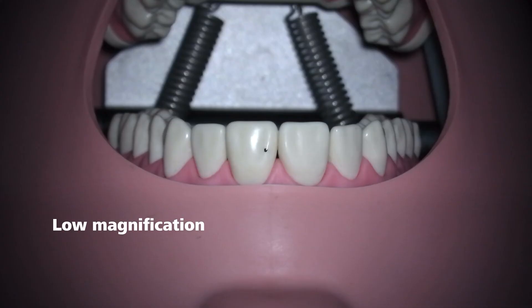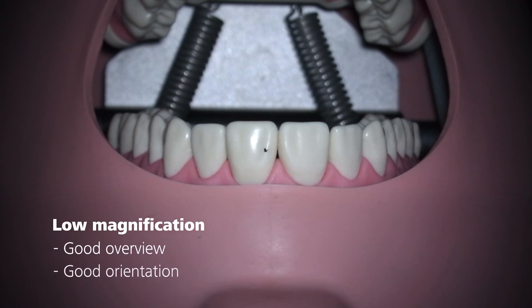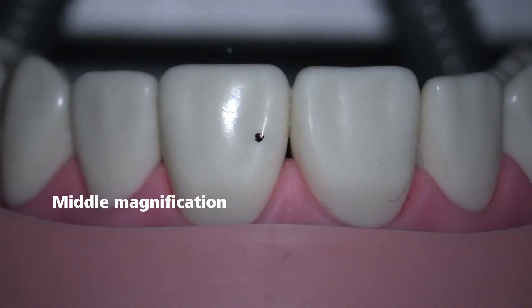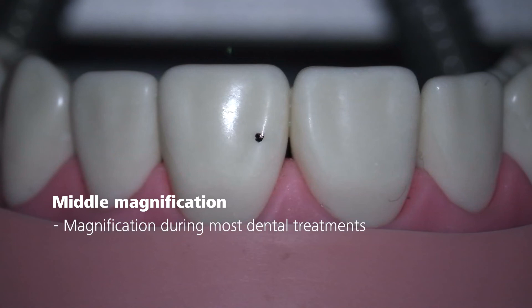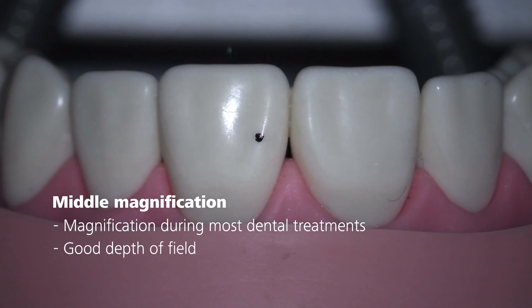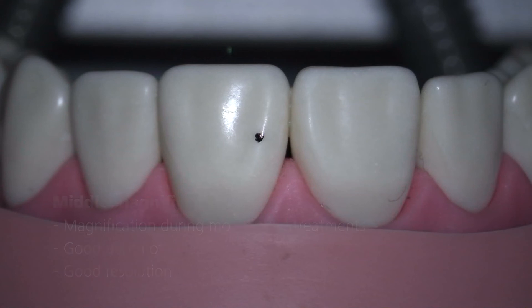Low magnification of approximately 1.4 to 8 times enlargement gives you a good overview and orientation of the region of interest. Middle magnification of approximately 8 to 16 times enlargement is used for most treatments, offering the best combination of orientation, depth of field, and recognition of fine details in the targeted area.